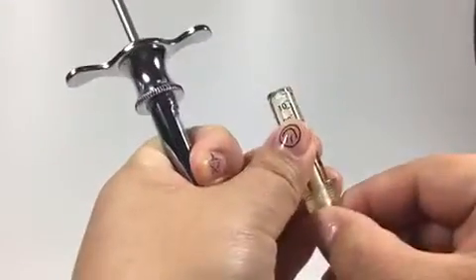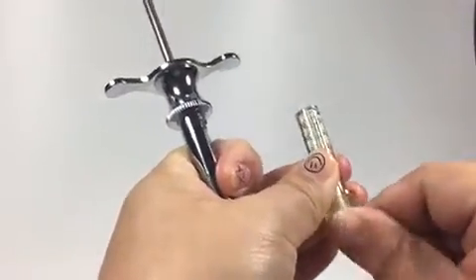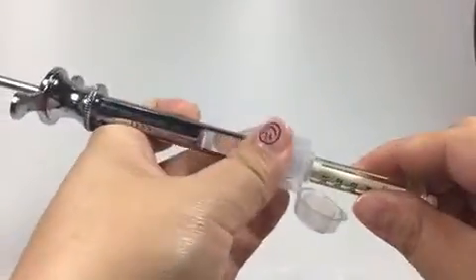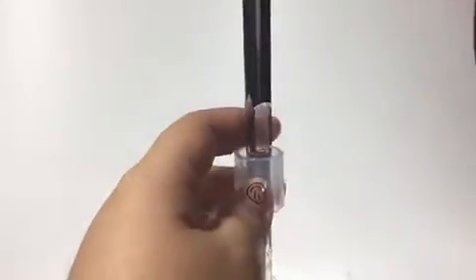For our nozzle, go up and down to make it smooth, then connect firmly. It is better to push one hand straight down. You can see no leakages — fully connected.